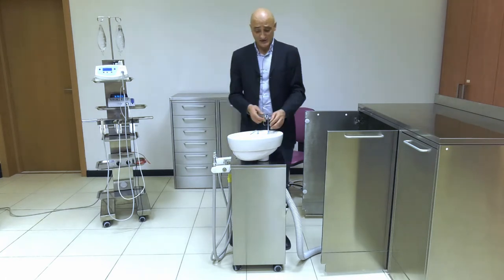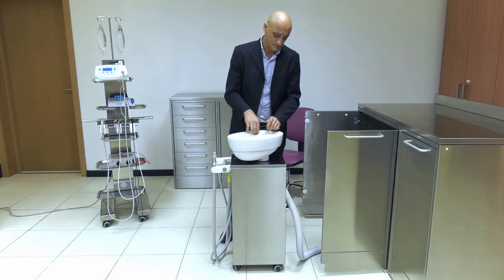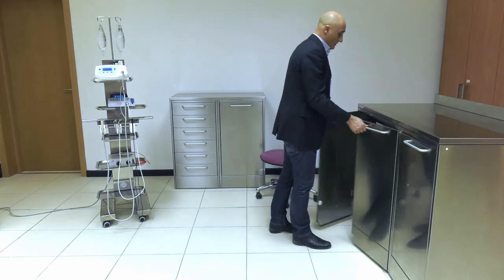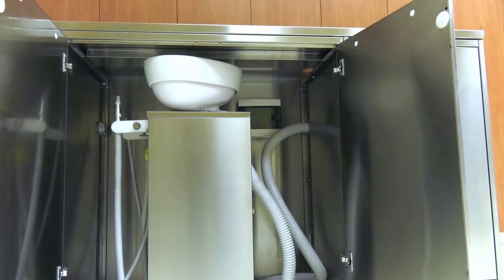To do so, it is necessary to remove the nozzles. Once the nozzles have been removed, just carry the cart back into its cabinet. This allows you to easily clean the room and set it up for a whole range of other purposes. For example, if your Morpheus chair is fitted with leg rests for a gynecologist, it is not pleasant to see an orthodontic cart and a suction unit fitted with a cuspidor in a space devoted for gynecology visits. This is why our cabinets are designed to conceal the whole unit.